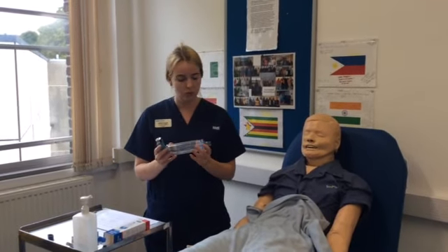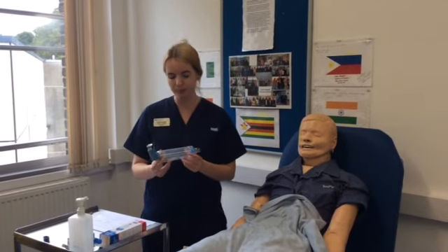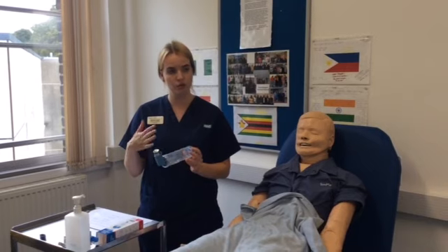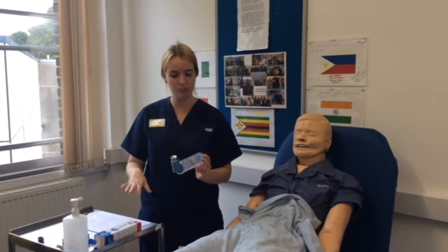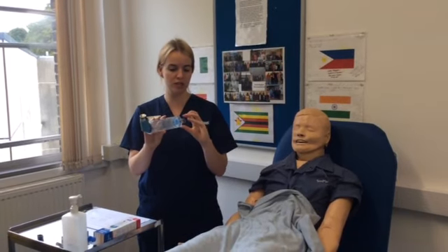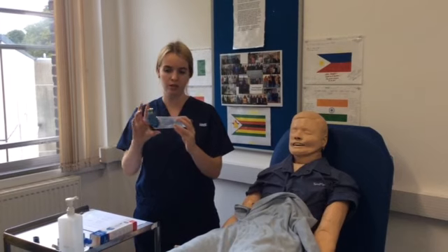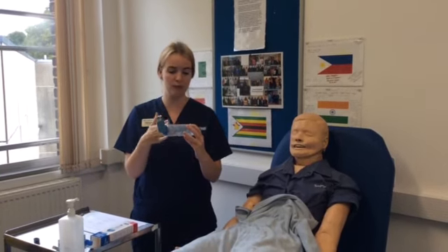Okay? What you need to do once you've done that is make sure you're sat upright in a chair, and then breathe normally. Take a deep breath in, breathe out. Insert this in your mouth, using your teeth and lips to make a seal. Depress the canister fully, so the medication comes out.